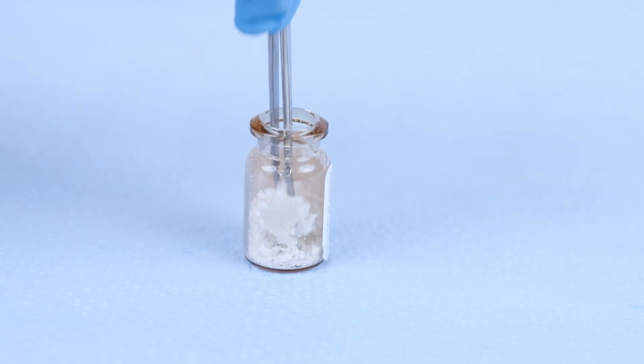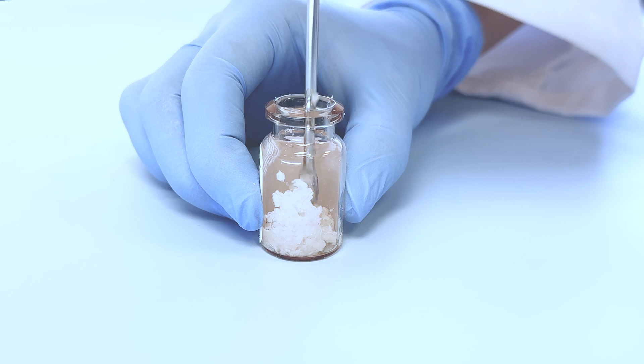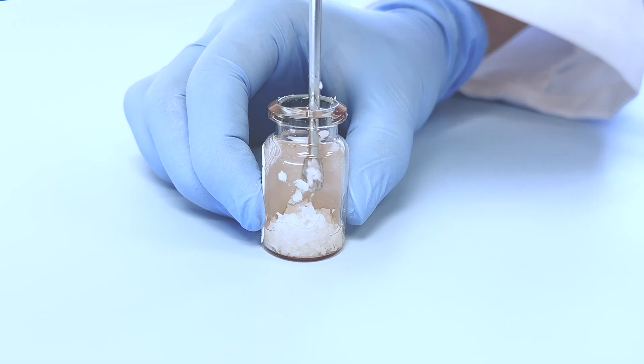The particles will become visibly hydrated upon contact with sterile saline. Prior to pouring directly from the vial, lightly agitate to ensure particle hydration.